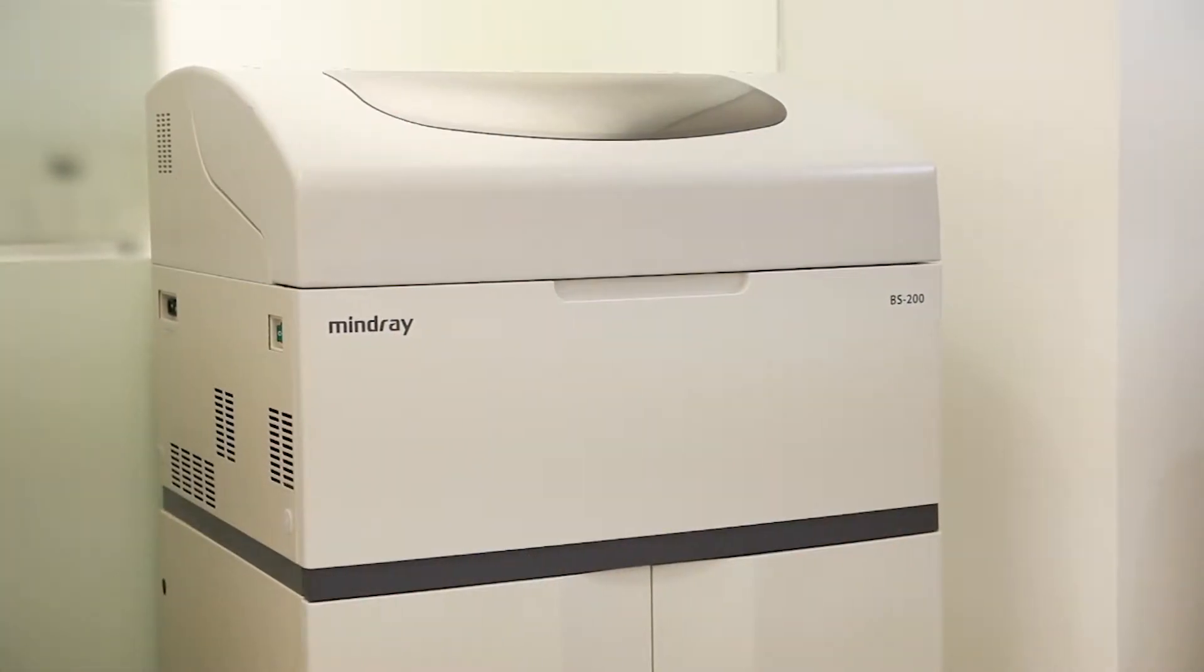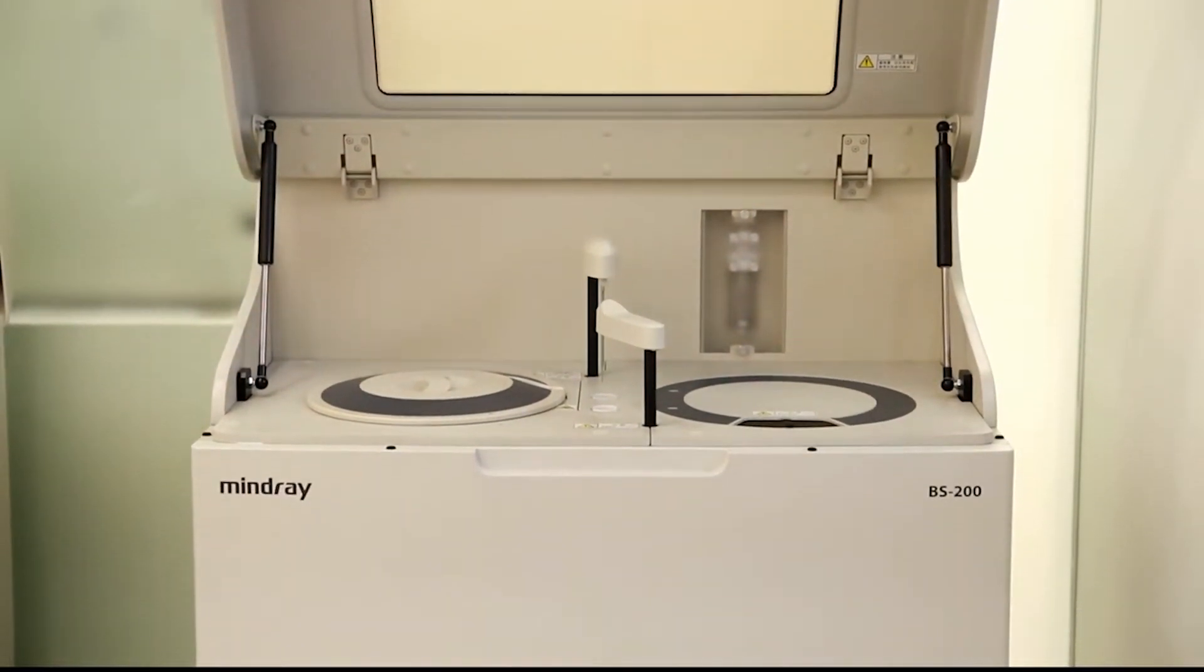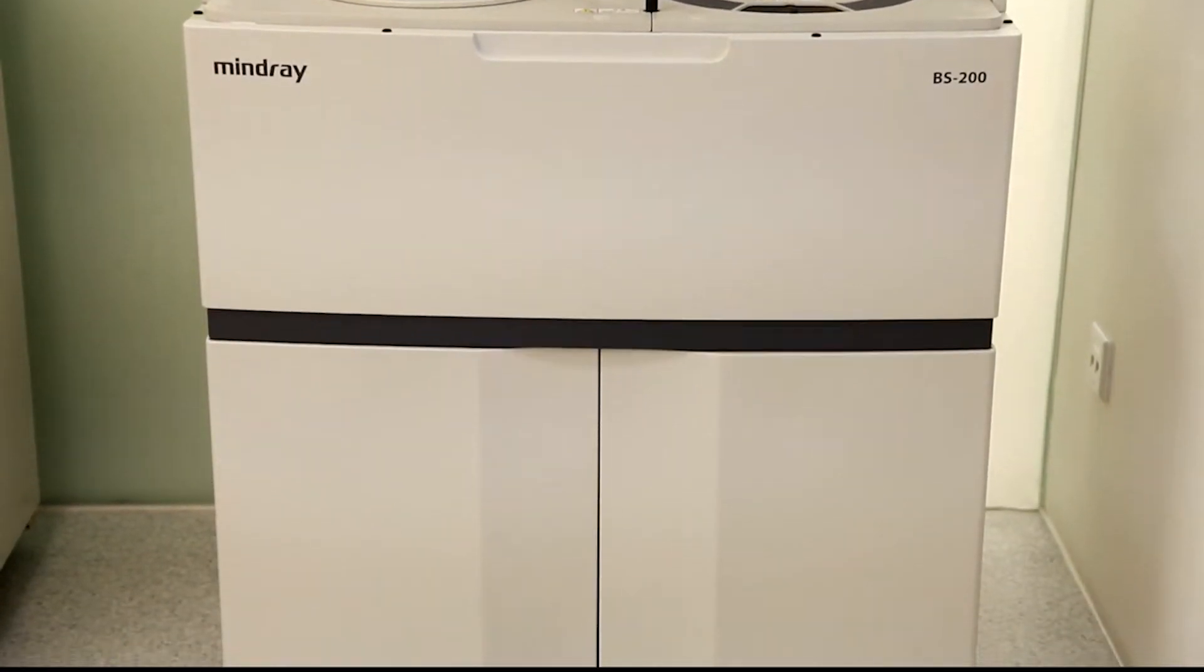At MindRay, our R&D team works endlessly on analyzer improvements while keeping your daily challenges in mind. Our innovative analyzer seeks to satisfy your needs in a highly regulated and demanding clinical environment.